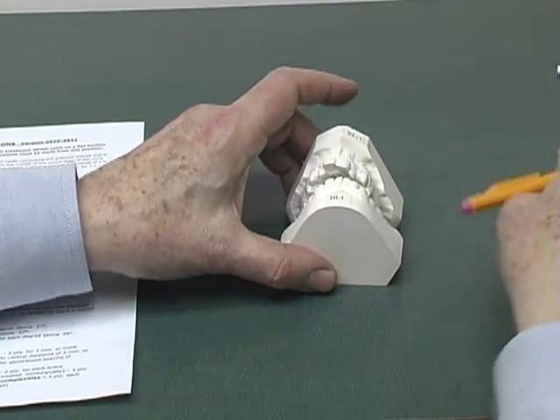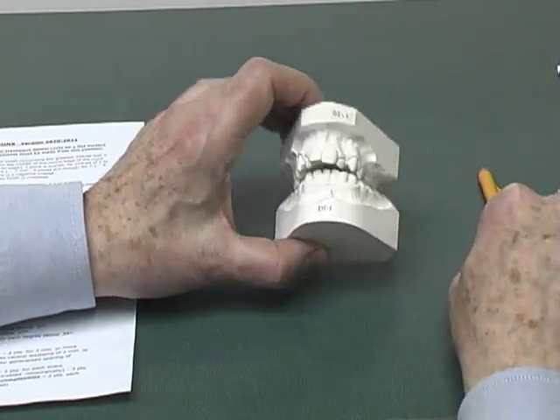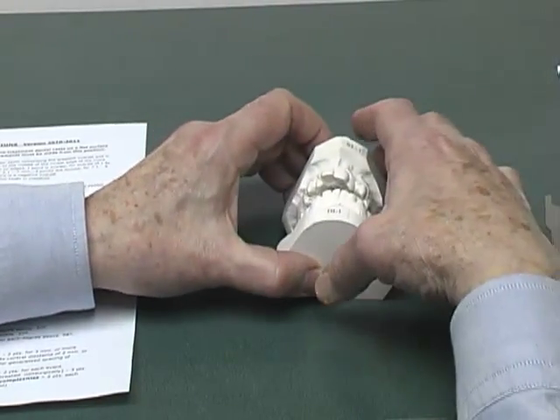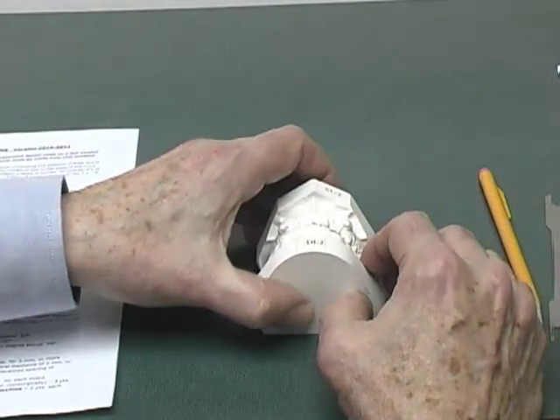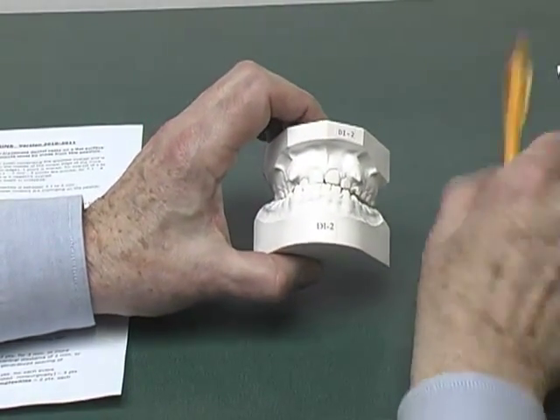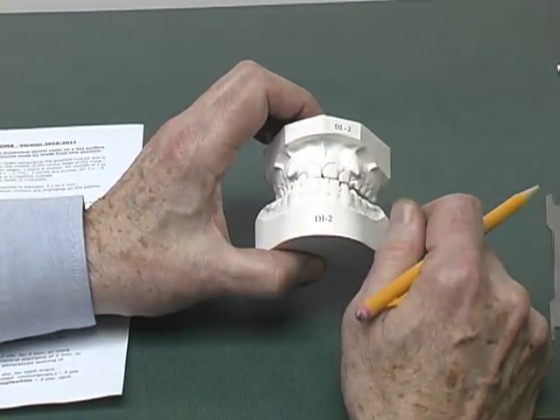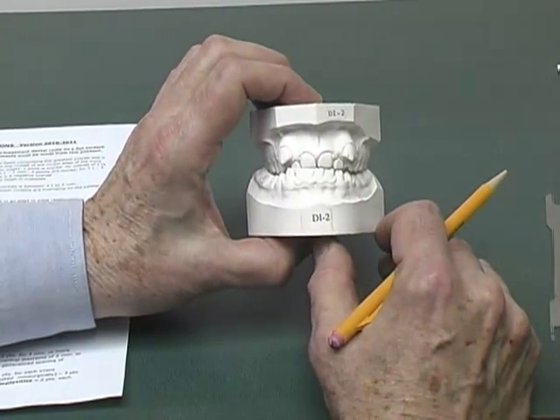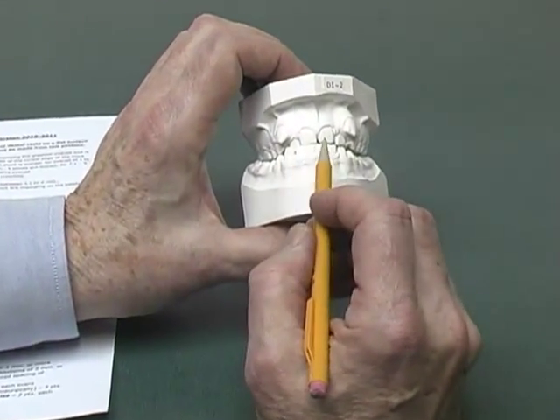Now I'm going to cease measurement of this DI1, and I'm going to use another set of casts to demonstrate additional information. This set of casts is DI2, which has a shallow incisor relationship.